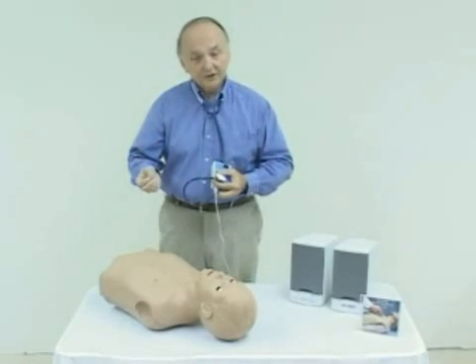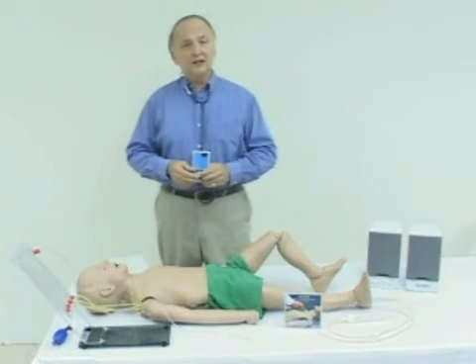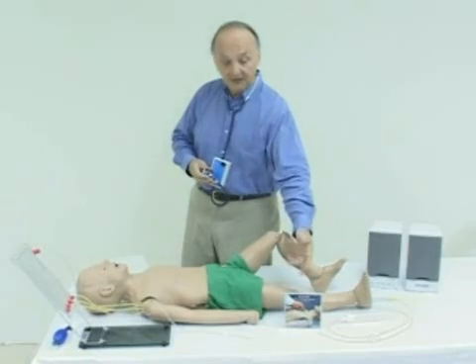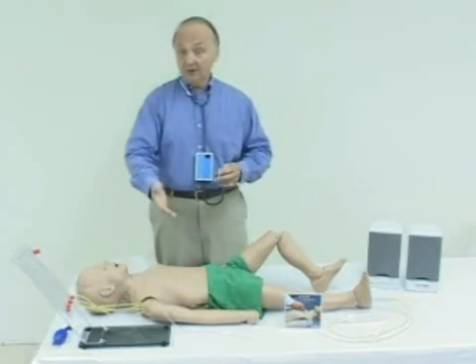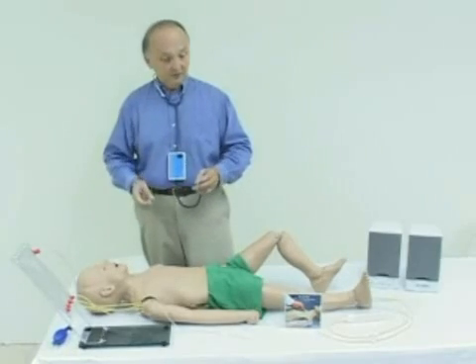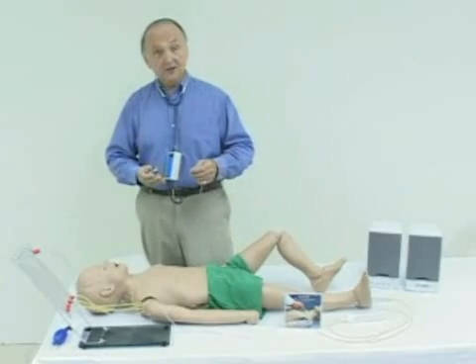We also have this available in pediatric. Let's look at our pediatric heart and lung sounds. Again, we have these in four different configurations. One is a CD-ROM for your Windows 98 or ME computer. What we've shown here — rather than a torso, which you can also get — is an example of how an update kit can be installed on one of our five-year-old mannequins. Let's assume you purchased, some years ago, one of our five-year-old airway and trauma mannequins with intubatable airway, CPR, and IO, and you'd like to have an update kit.